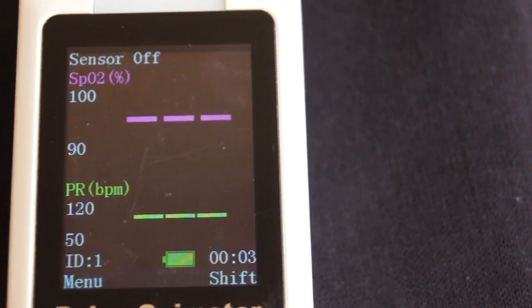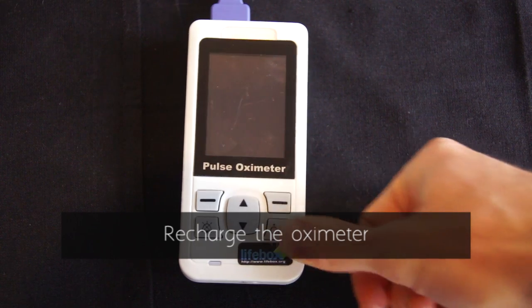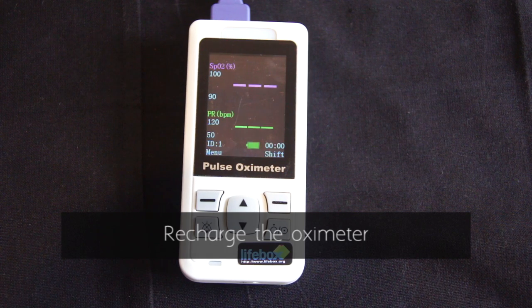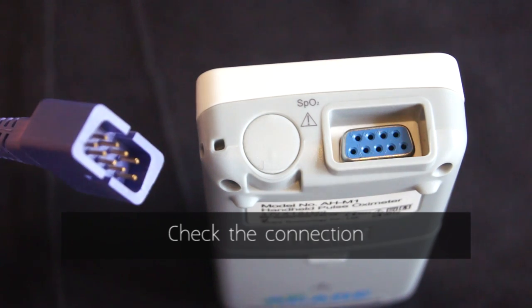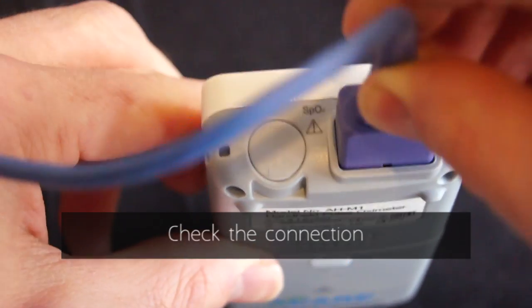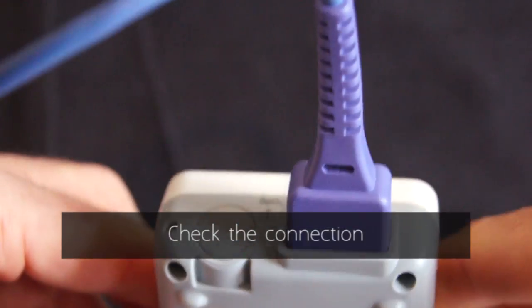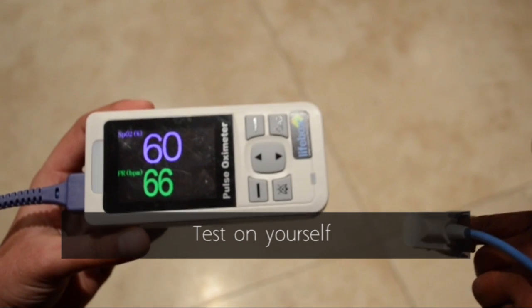Sometimes the problem can be with the oximeter or the probe. Check the oximeter is properly charged, as low charge can cause faulty readings. Check the probe is properly connected and be careful with the connecting pins. Check the oximeter on your own finger to see if it is functional.